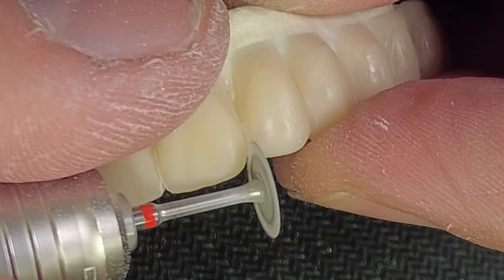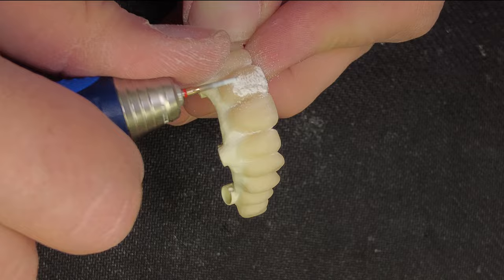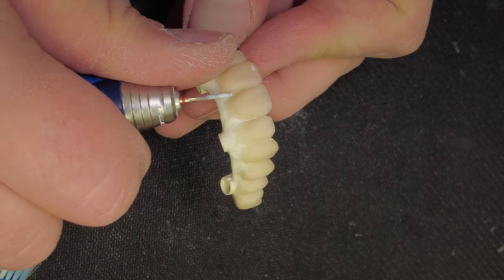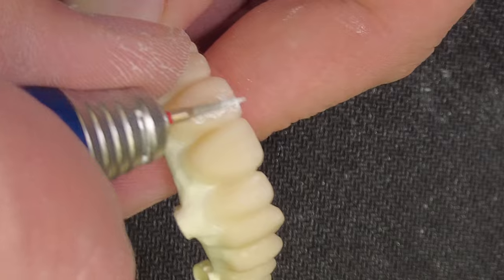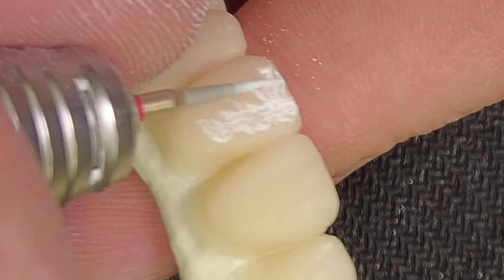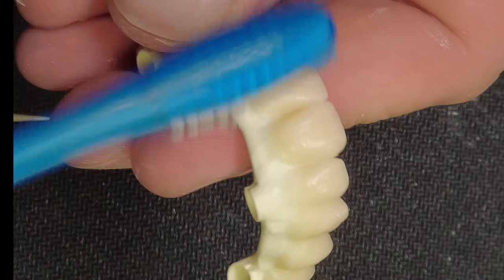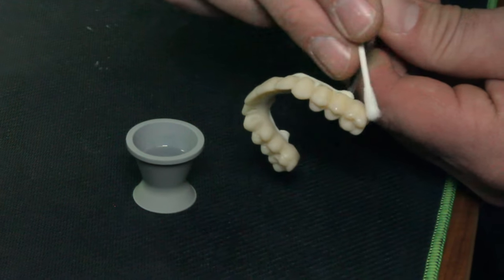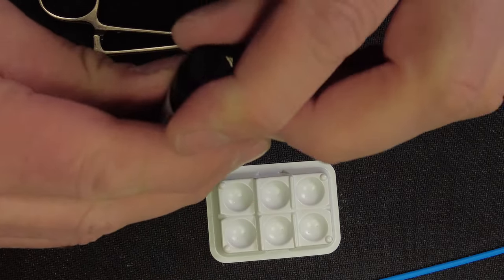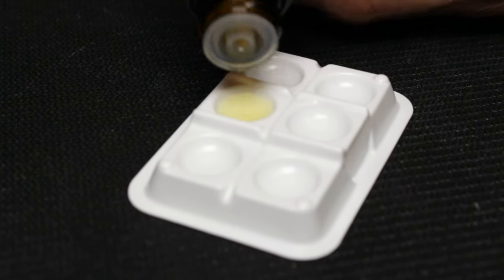I'm going to cover contouring briefly here. The nano ceramic material has a high content of ceramic particles — as I said in the opening, it's 78% ceramic particles, the rest is PMMA and some fillers. You have to be careful when you shape these teeth that you don't shape an oval tooth like a square tooth. I'm going to put some vertical lines and then some horizontal lines, and after I steam clean the restoration and clean it again with alcohol — that's important — I'm going to put Pecbond on the material, especially on the Trilor and a little bit on the jacket as well, applying it with a micro brush really carefully.